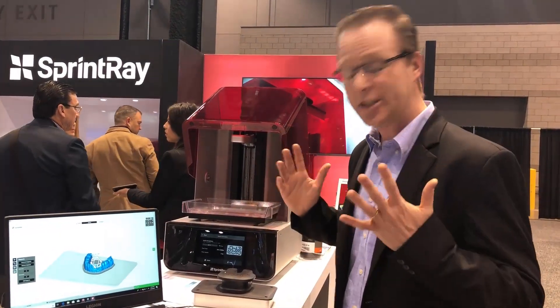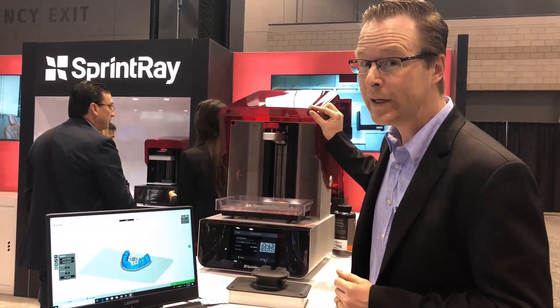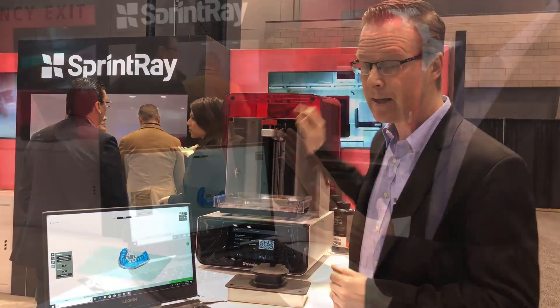And the neat part too — this is just kind of a little X-factor thing for me — is this incredible hinge. Just really efficient, nice and easy.